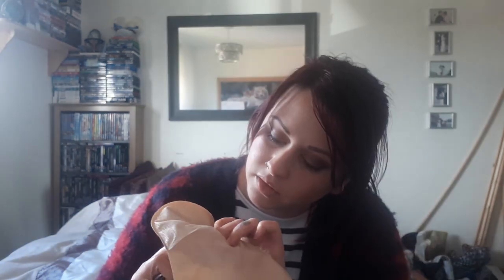Stab, stab, stab, twist, twist, twist — and then you just take the vent and close it securely. Let me just check to make sure that's all in place, because I'll be annoyed if I've wasted a bag.